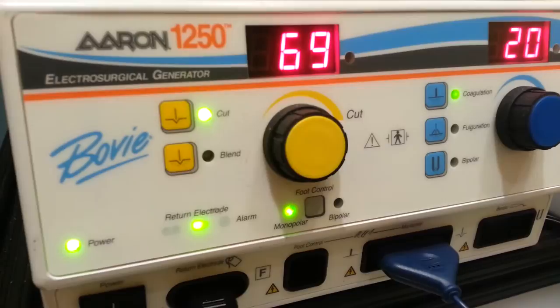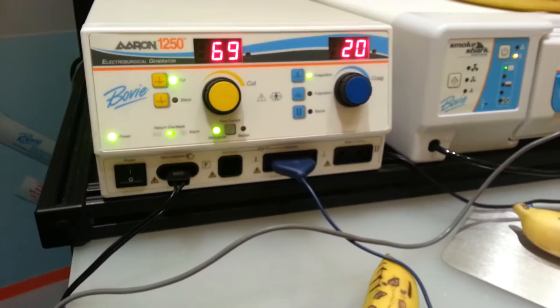John, again, the 1250 is a step up from the 950. The main difference between the 950 and 1250 is the 1250 has more power than the 950.